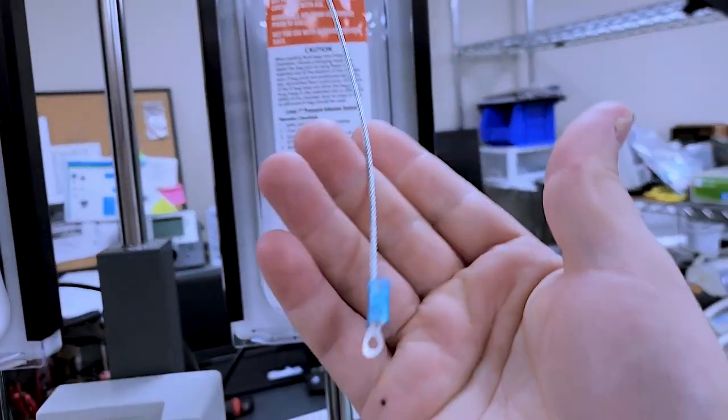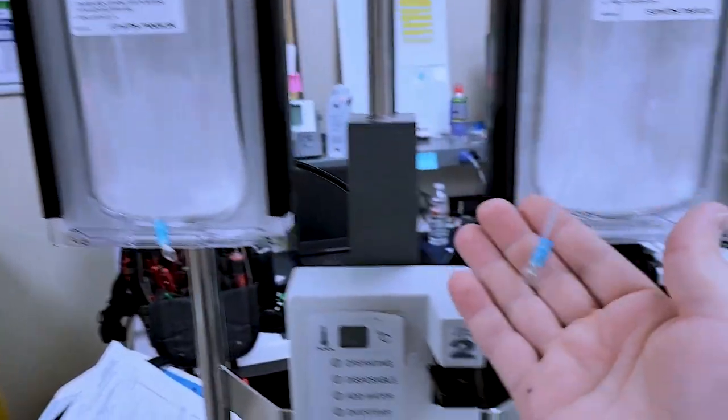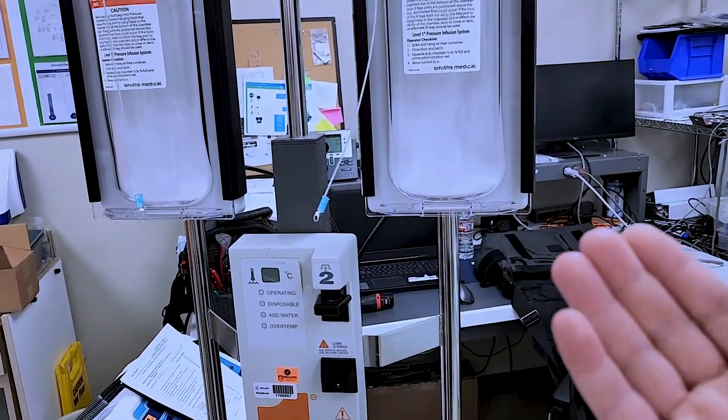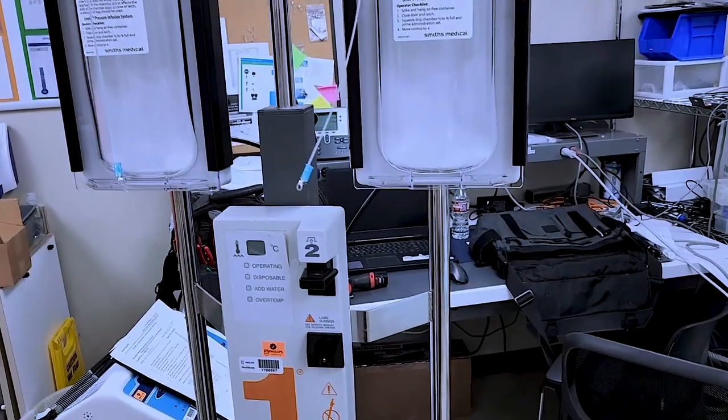Here I've got a braided steel cable. It's got two crimped on eyelets right here. We're going to put that on those Phillips and then it's going to be suspended midair. Wild, huh? So we're going to try it.